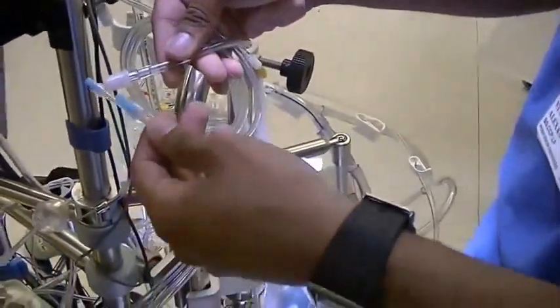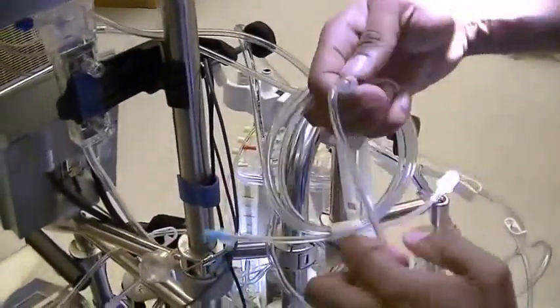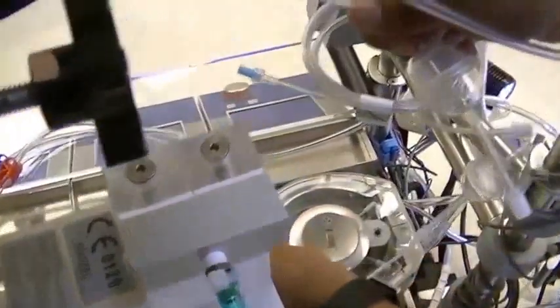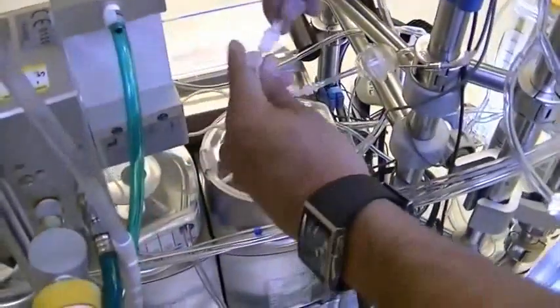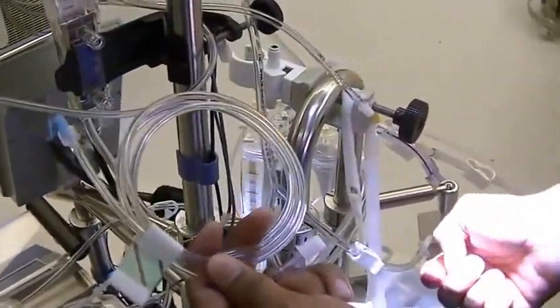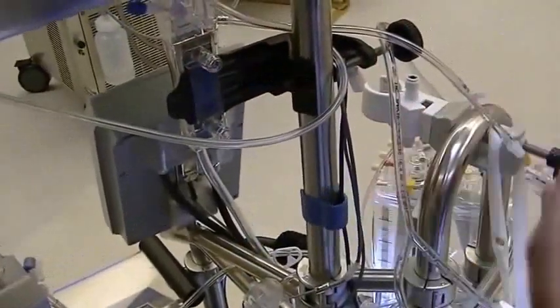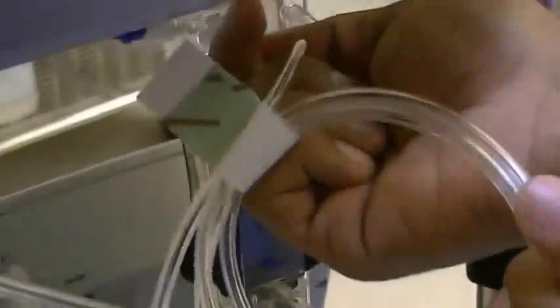The pressure manifold can hook into here. You can feed it off this way, and this will be connected to the second transducer, which is for cardioplegia. And you can hook up the pressure relief line onto the port here on the cardioplegia itself — the female line.